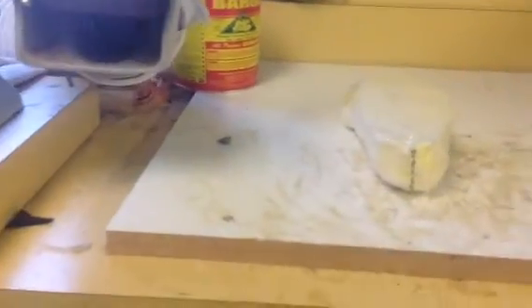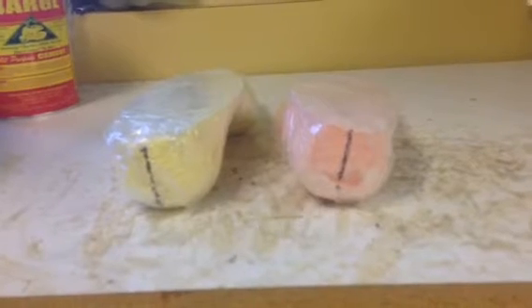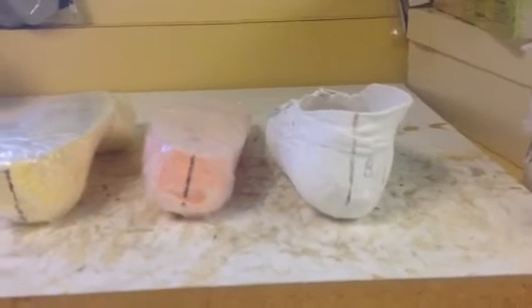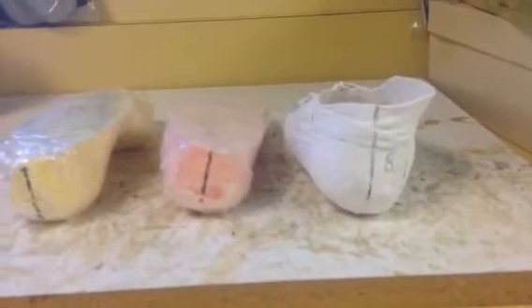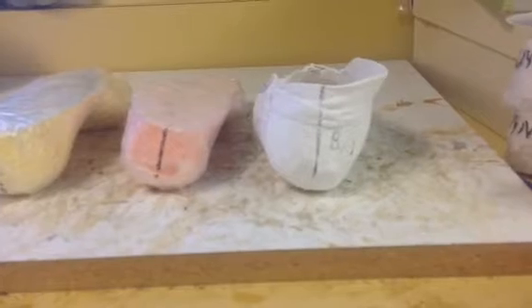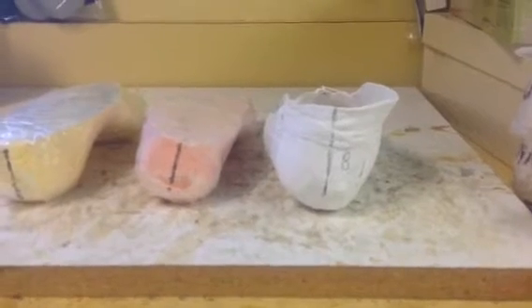Remember, the negative cast only captures the forefoot to rear foot relationship. Now this is a cast of about 12 degrees of forefoot varus. You see how, just like in my negative cast of the left foot, even though it's poured vertical where the top is perpendicular to a straight heel, you can see both of them lean inward and produce pronation. So forefoot varus produces pronation.